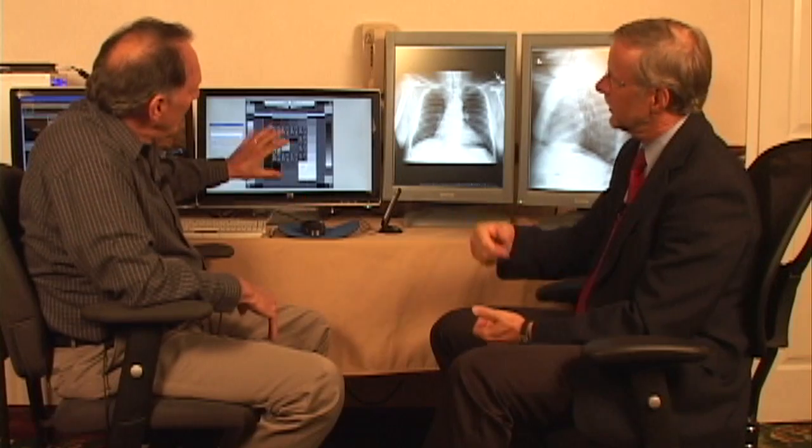So what you end up doing is you have to isolate the actual workstation from the PACS. If you can do that first, make sure the workstation is actually calibrated properly. So you bring up the test pattern from the vendor that is provided with the monitor, and then you want to ensure that once you analyze this and you're satisfied that the display function between your computer graphic card and the actual image file for the test pattern is correct, it's presented correctly.